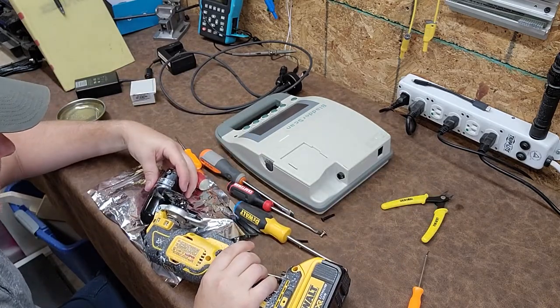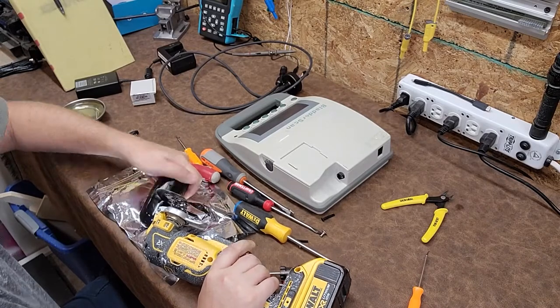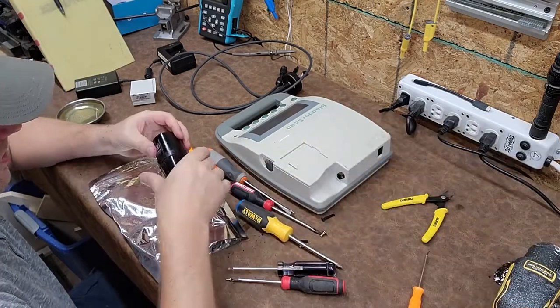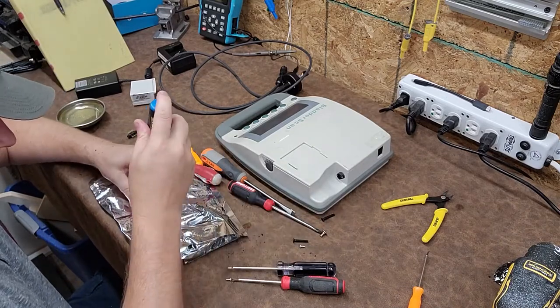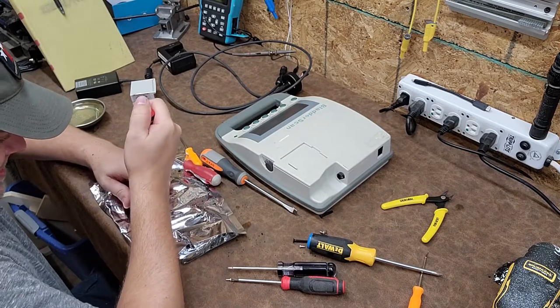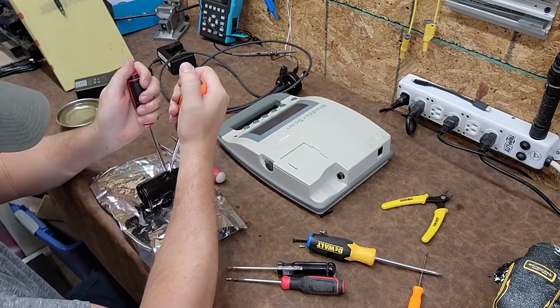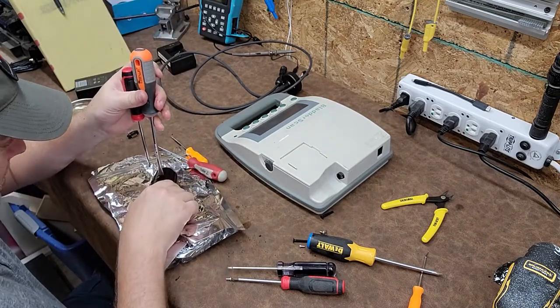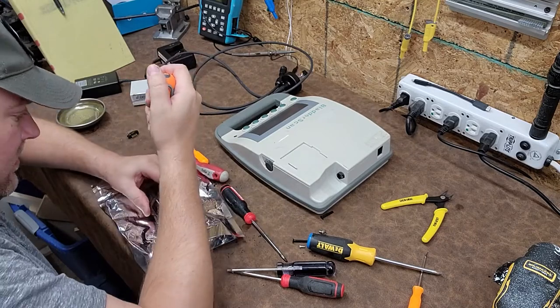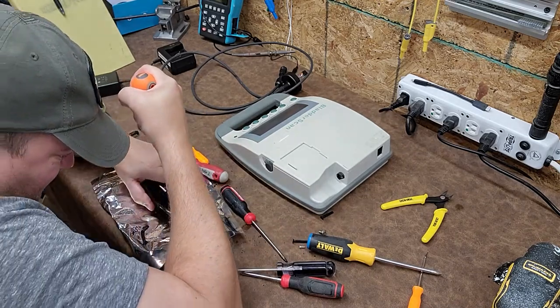These devices are end of life so it doesn't matter anymore. I think I just about have it. Since I have a groove cut in there now, I can get a flat blade in and pop it. The build quality of this guy is obviously really good — this is not cheap plastic by any means. And it doesn't help that my hands are covered in this weird oil, because now everything is slippery.